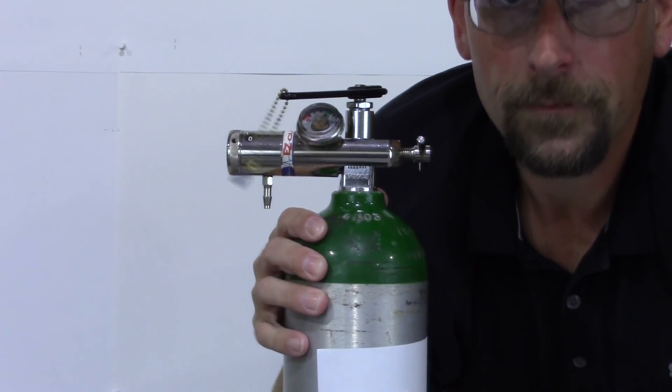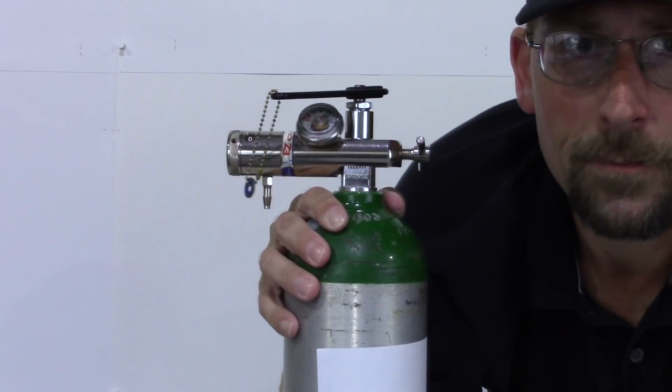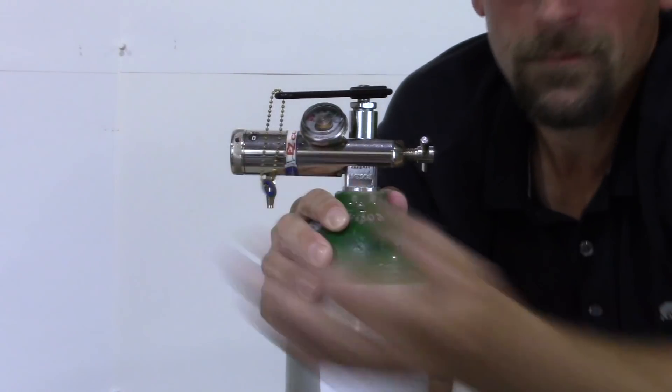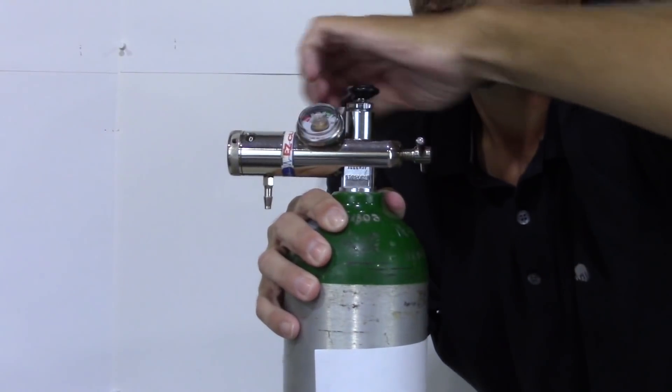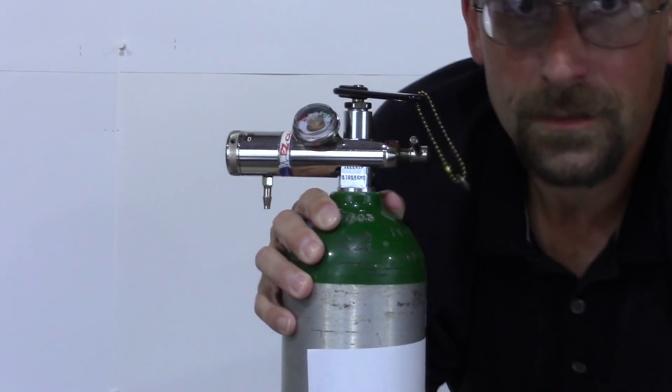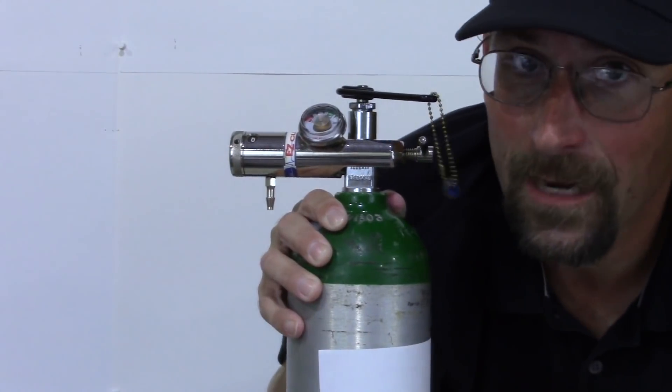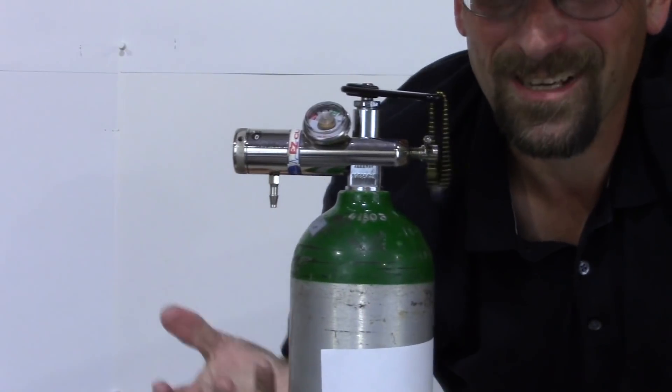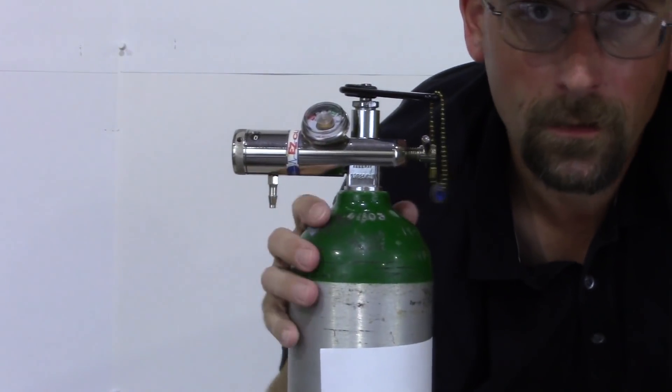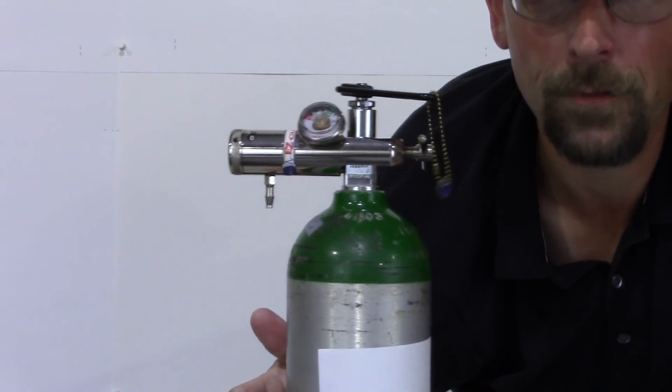Let's turn that off. You're at the doctor's office. Say they put you on their oxygen. You turn that off because you want to conserve air. Close this up just in case somebody bumps it, because even at half a liter in a couple hours, that's going to be some significant loss. We don't want any loss. We want to be able to get every bit out of it we paid for.